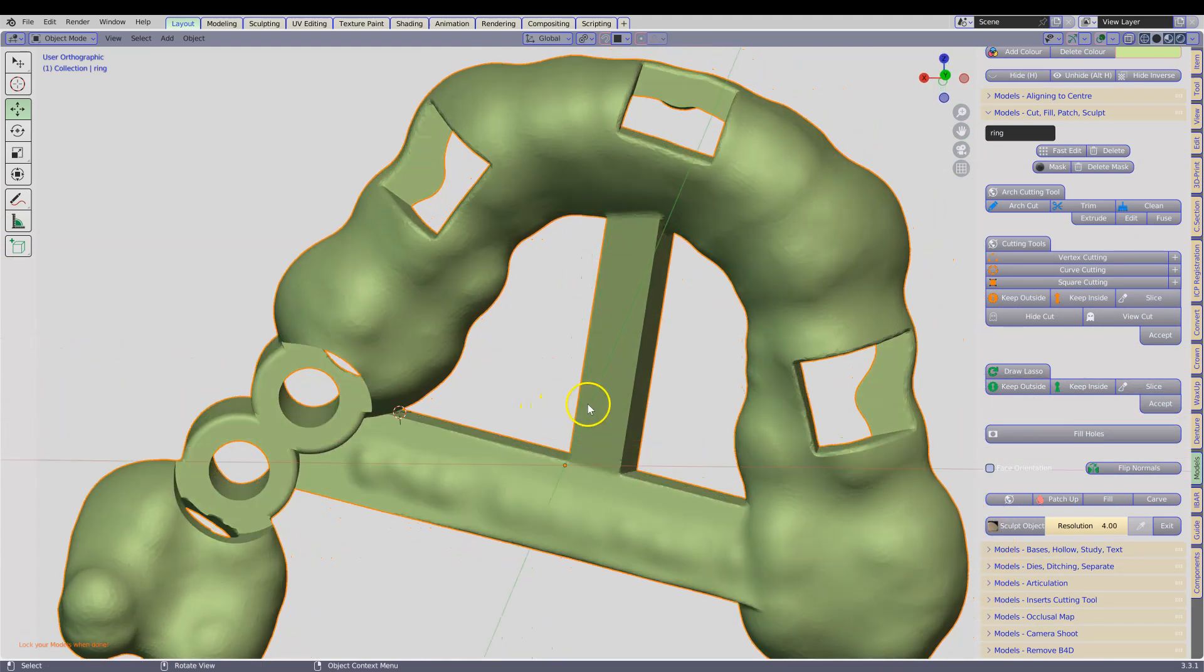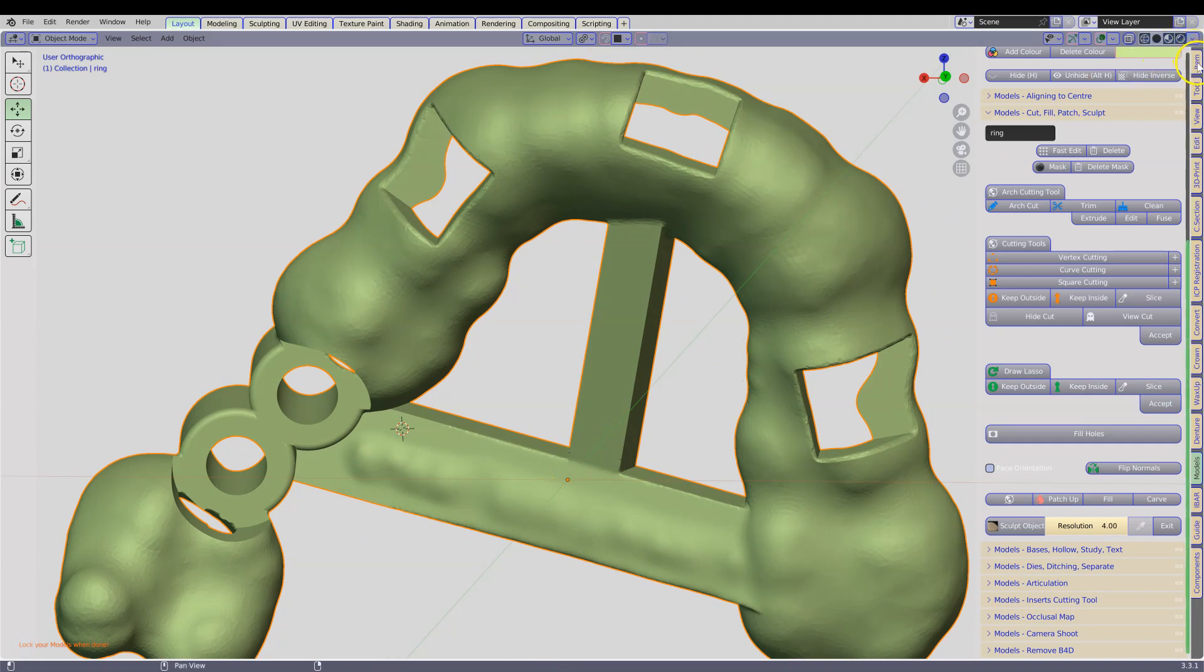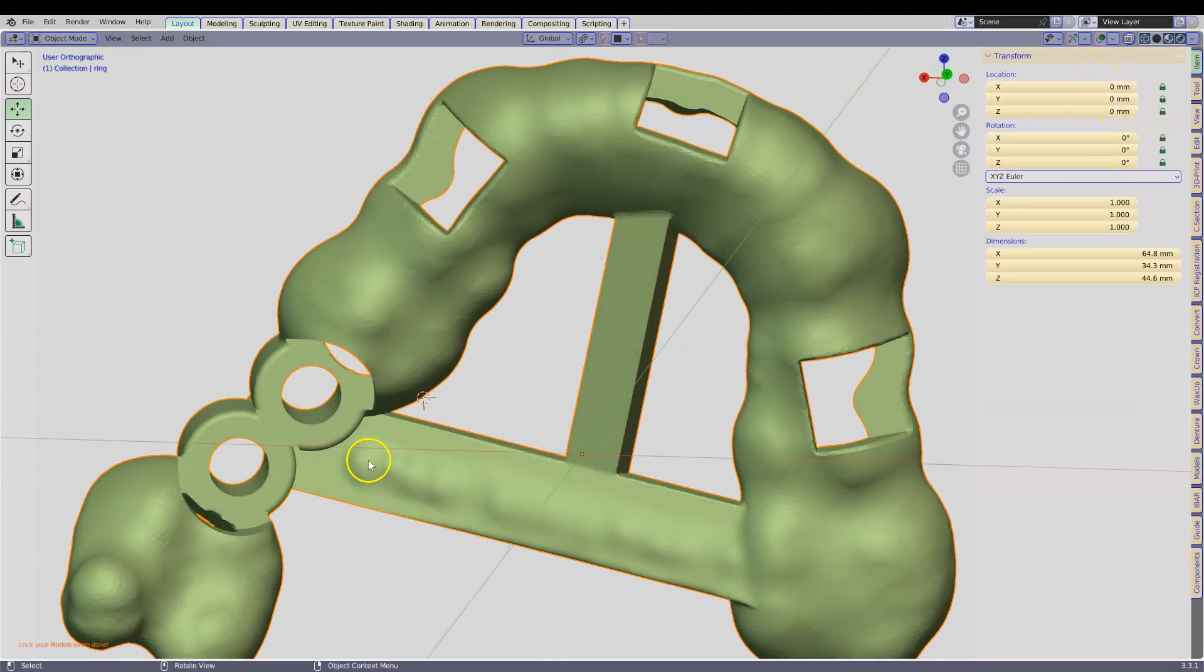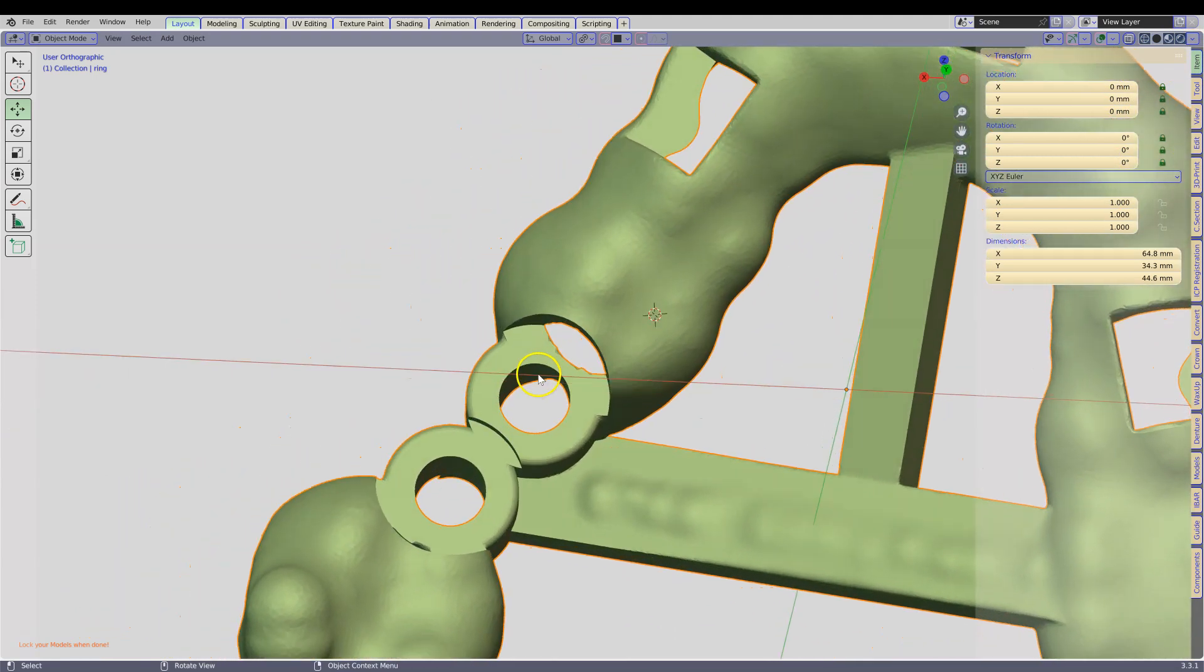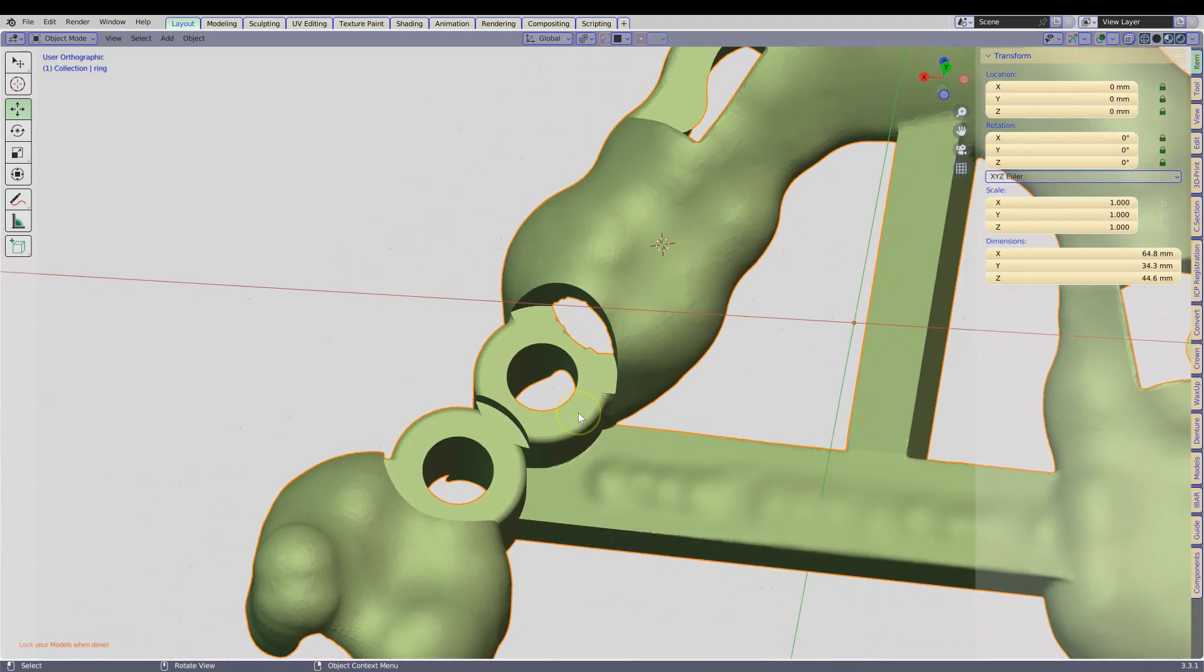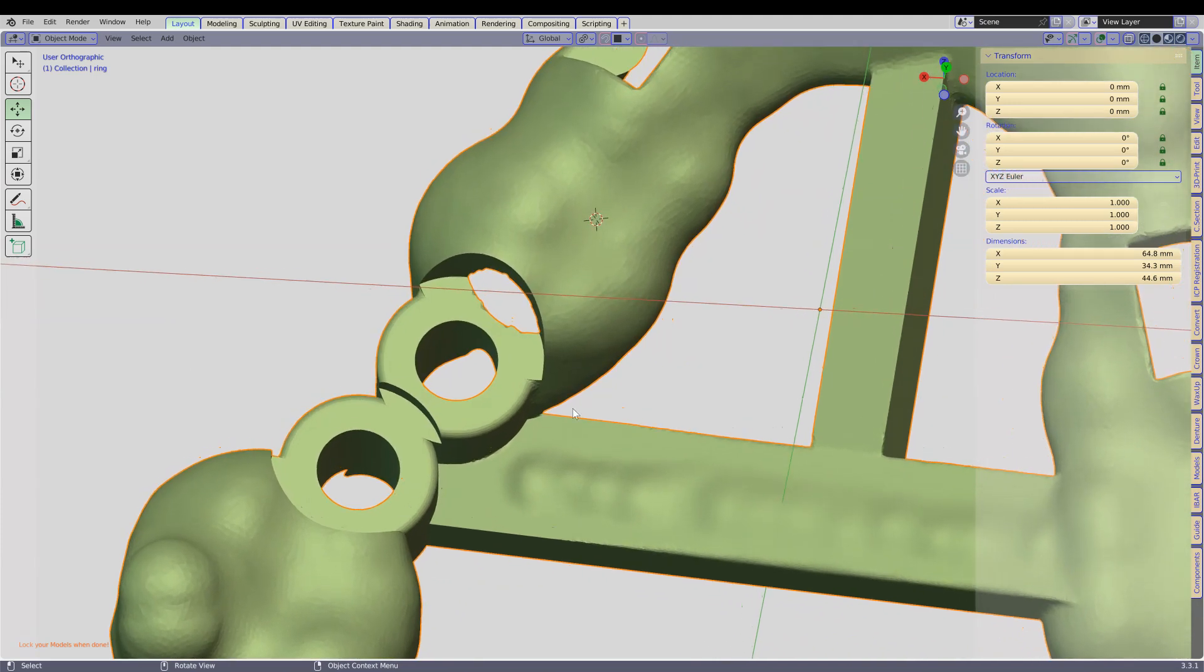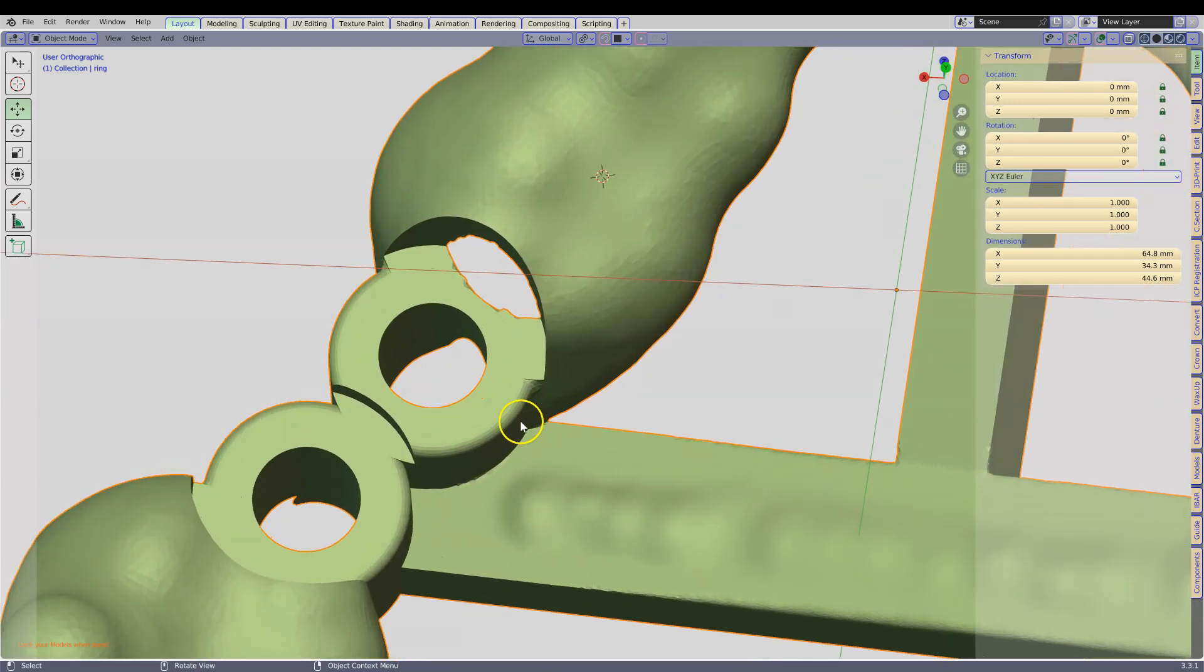Note that we do not have a coordination system. In the items we can see all of them are zero. How do we put our cutters in the correct location? In this video I am going to be showing you how to do this.